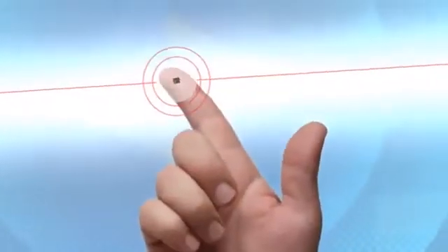This affordable miniature implant is designed to immediately restore vision. Gentlemen, we have the technology.